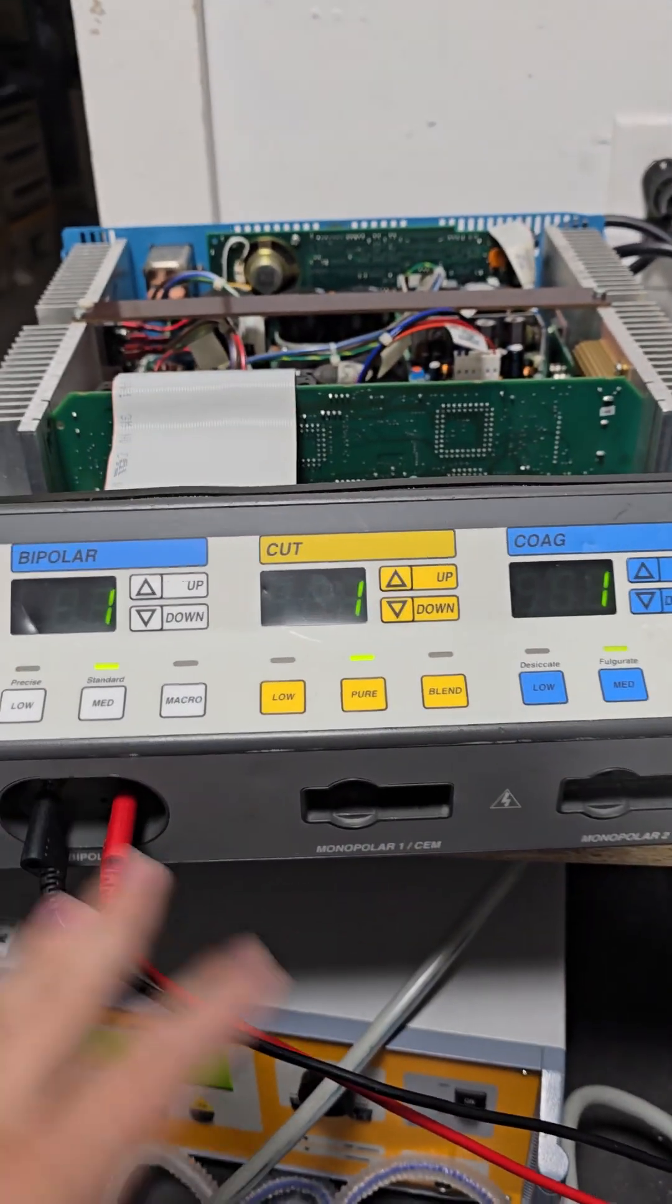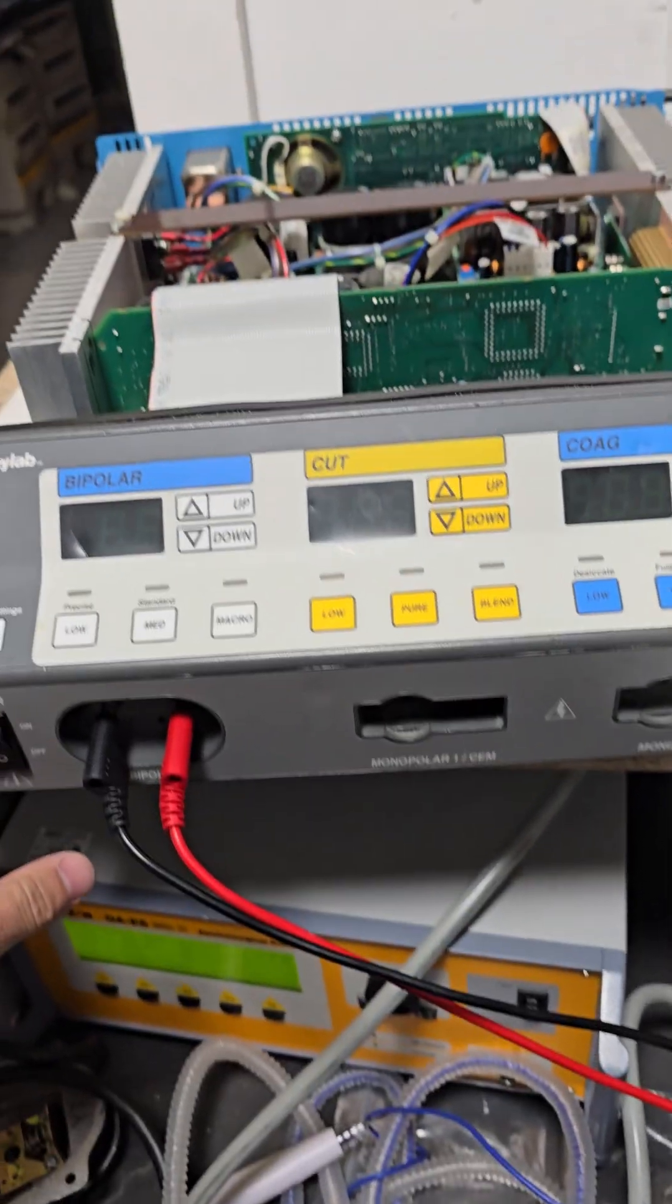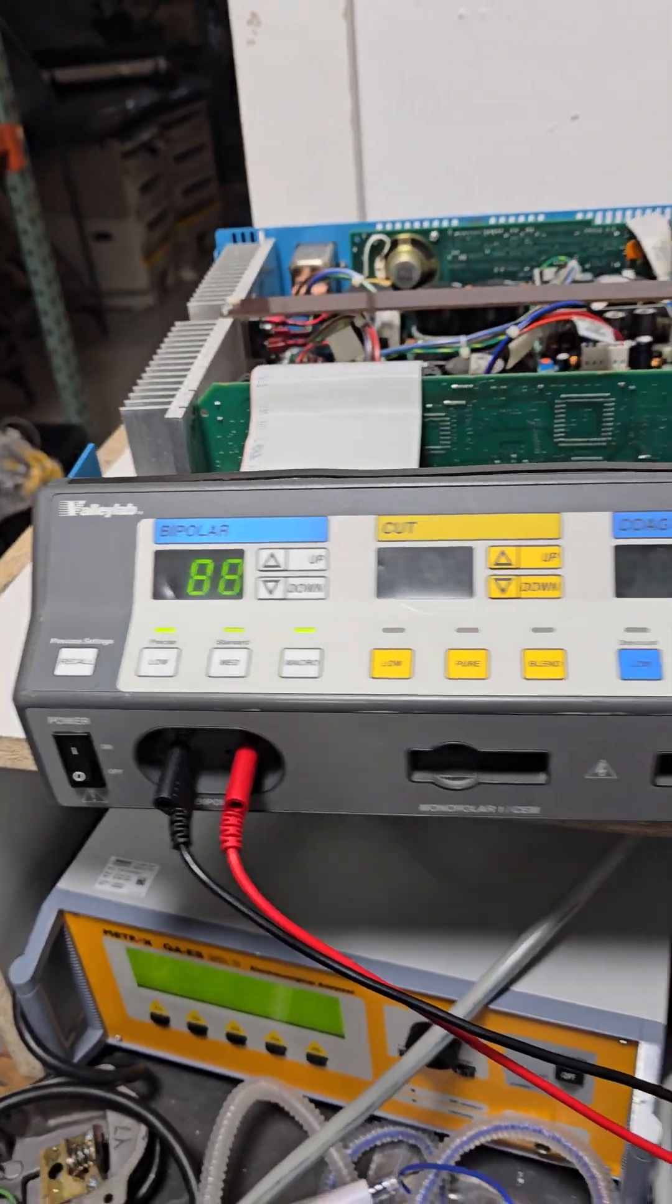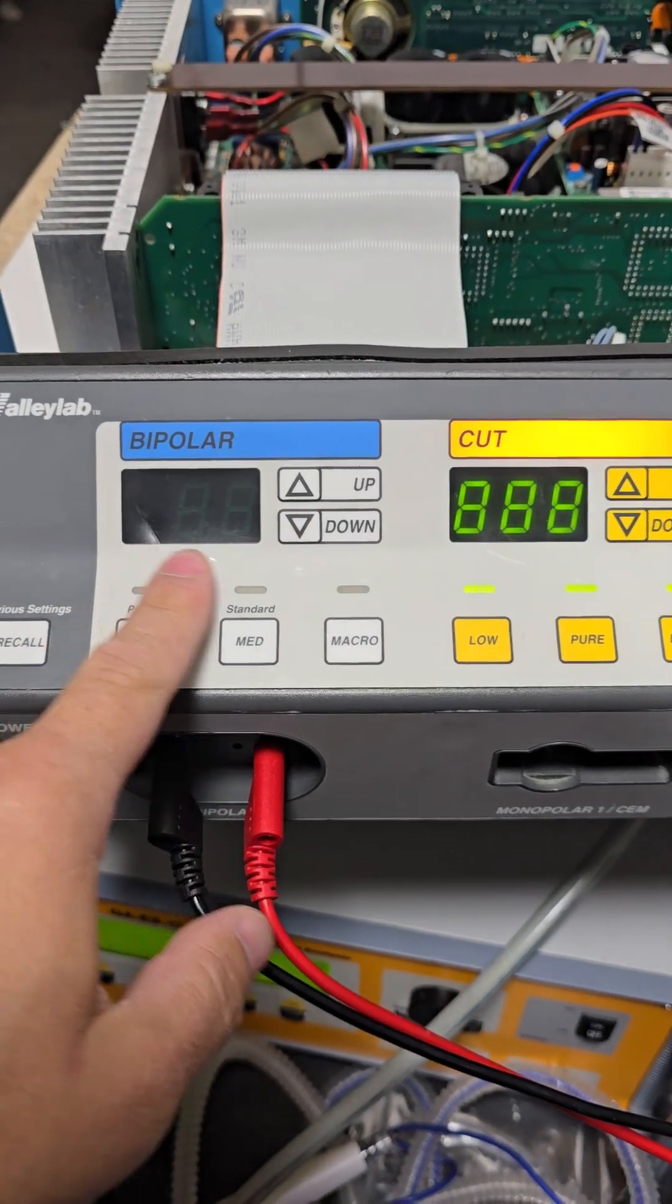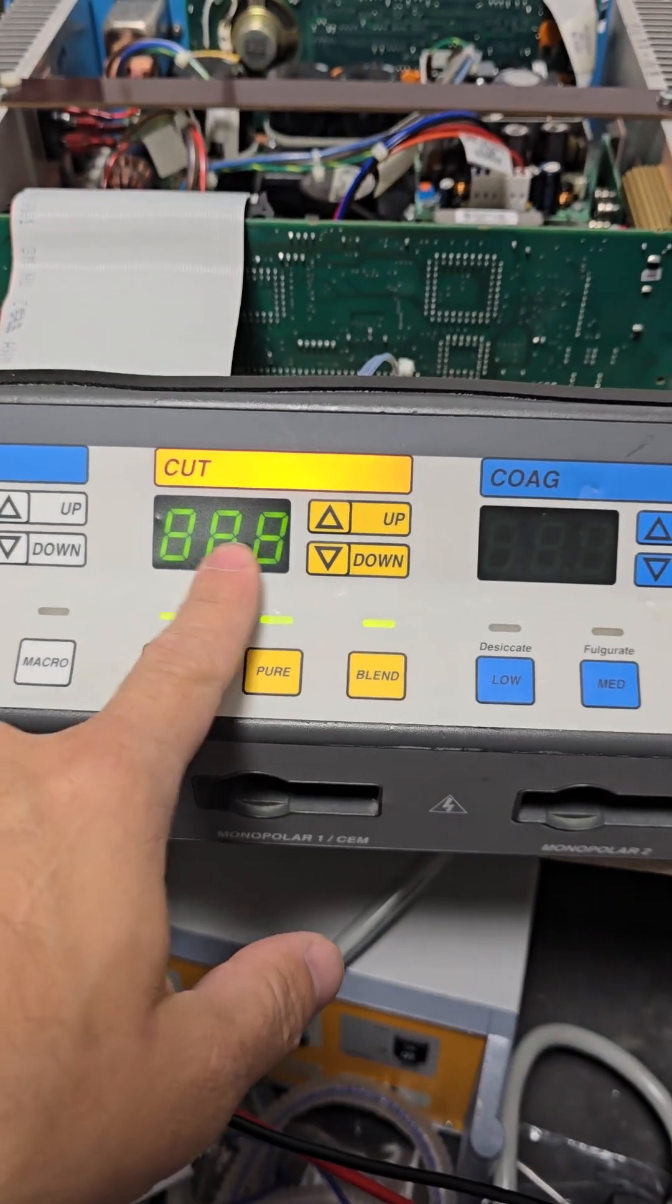So here's the Valleylab, turn on, self-test, LED test, let's do all that for you now. All LEDs and segments working, all lights and segments working.